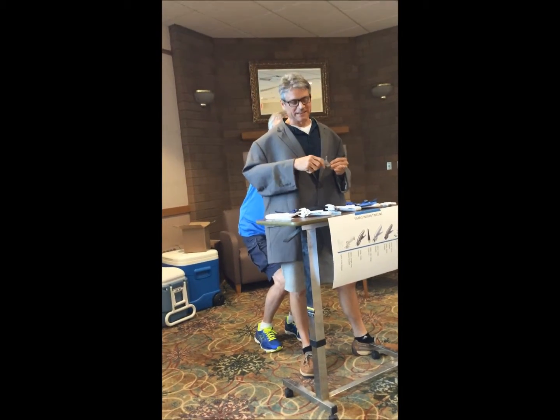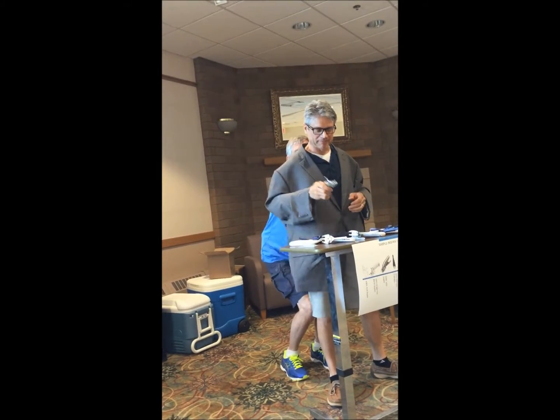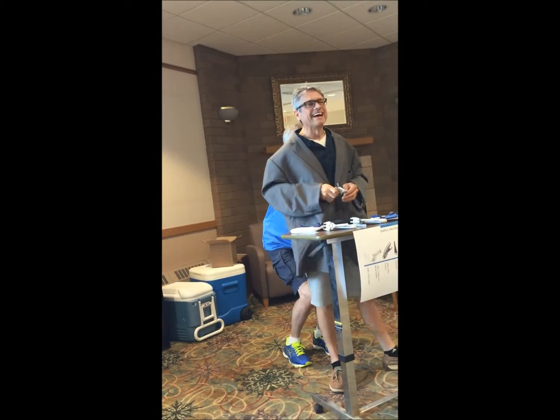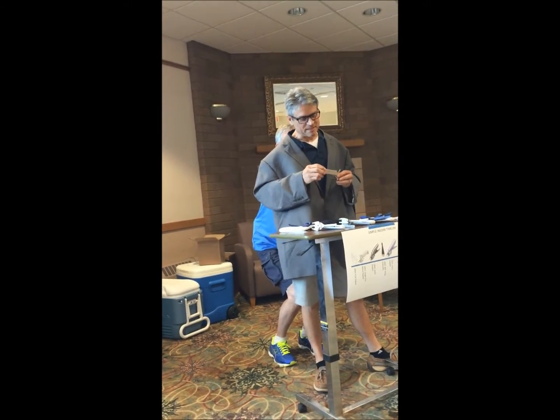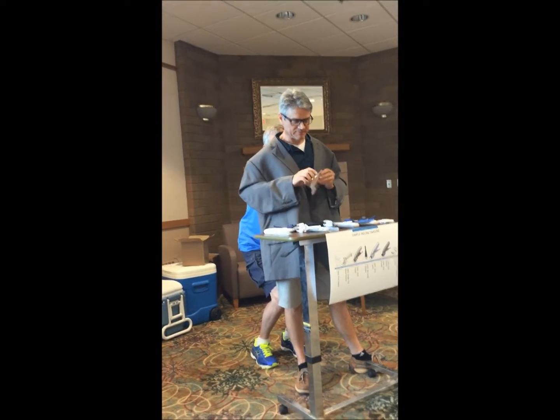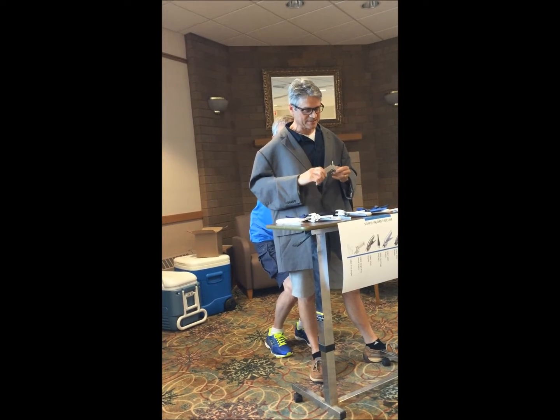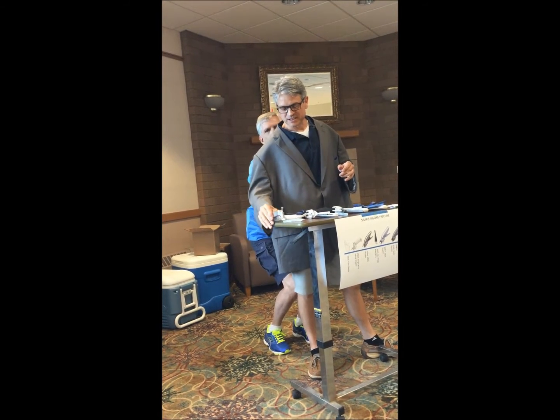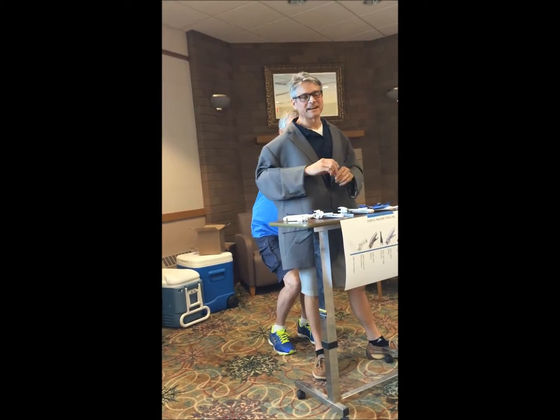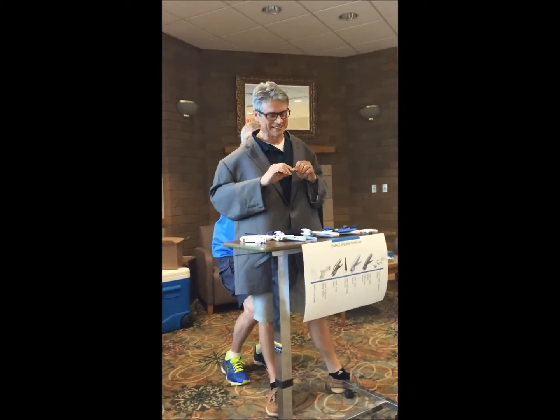We're going to start at the very beginning. Okay Dave, open it up. This is our first one — this was actually used on patients, this is a one-shot. We had to clean it and sterilize it in between runs, and you had to use the little forceps there to load it. We loaded one staple at a time, and then put them in.